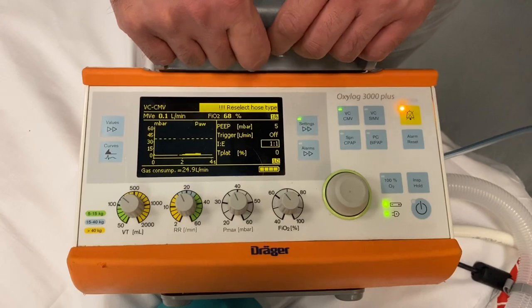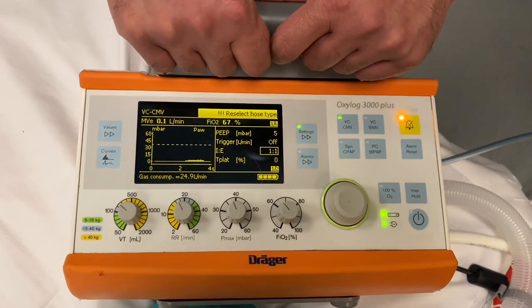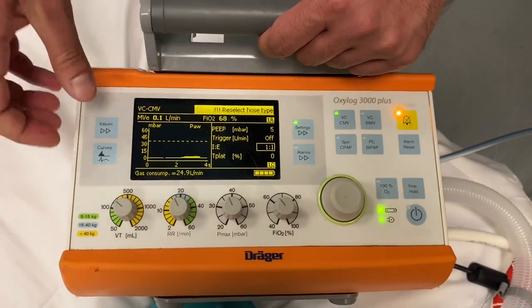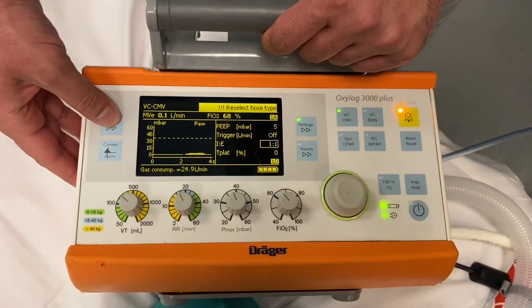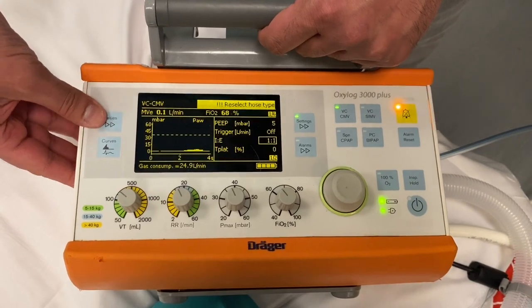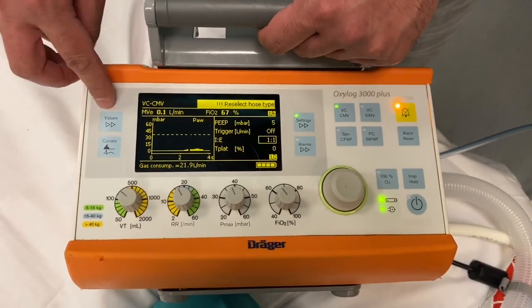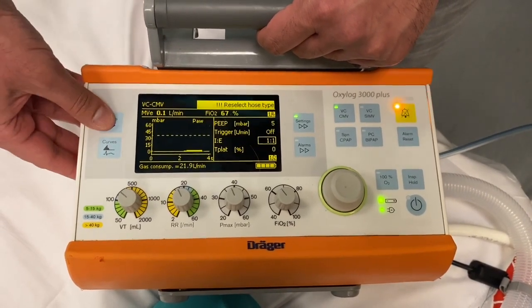At this point in time you have set up the basic settings. To review what tidal volumes the patient is generating, you press the values button up here.